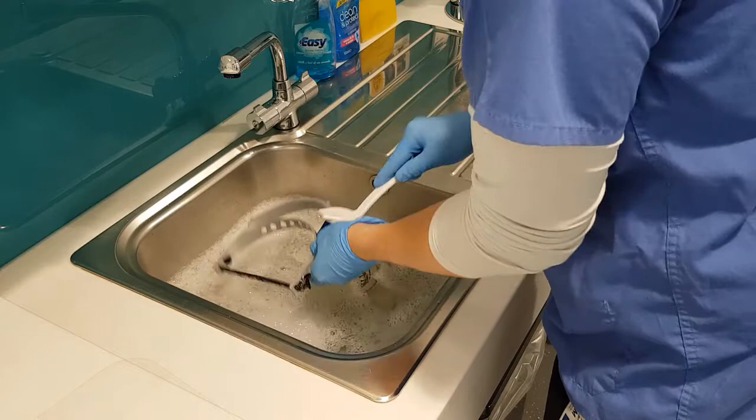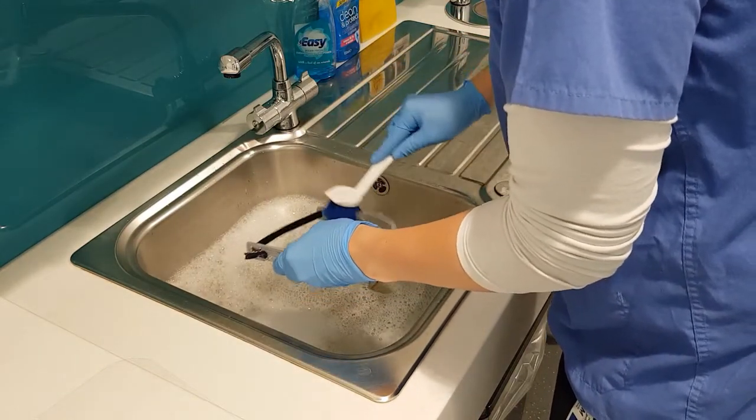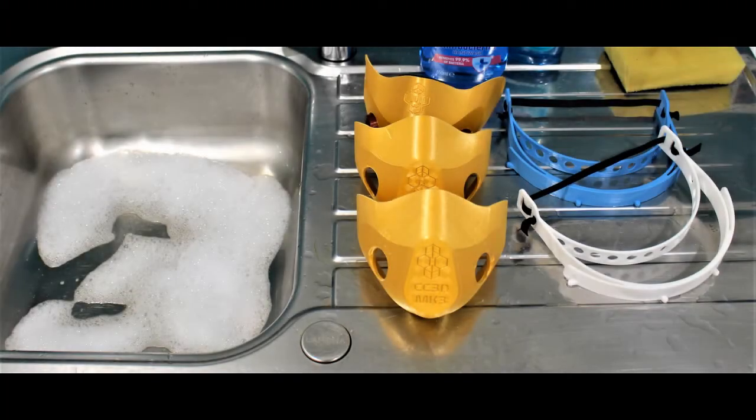The device should be sterilized on a sterile smooth surface and left to dry in a sterile dry environment. The device can be stored in a similarly sterile dry and cool place that is preferably out of direct sunlight. We recommend disinfecting the visor before each deployment in the workplace.